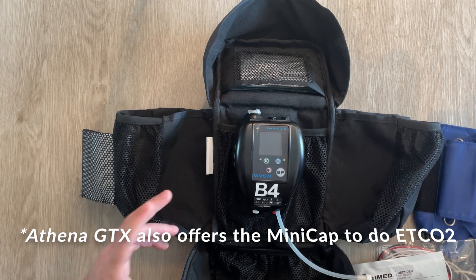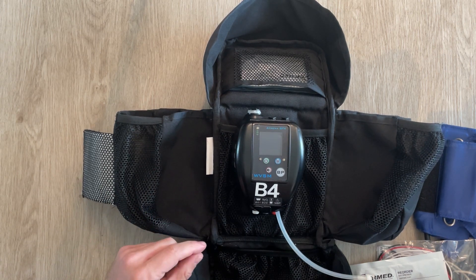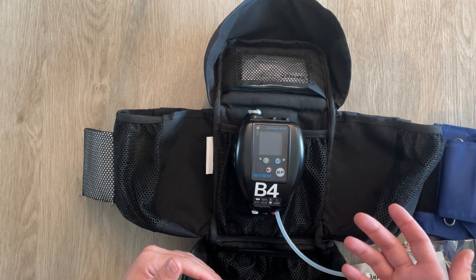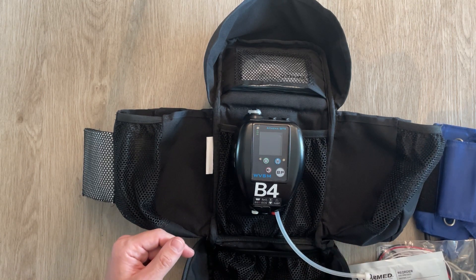It's a really powerful little unit, and the really interesting part is that it'll actually connect to an electronic device like a phone or an iPad, and you can monitor the status of different casualties all at the same time. We'll talk about this device in more detail, and I'll talk to you a bit about the app as well.